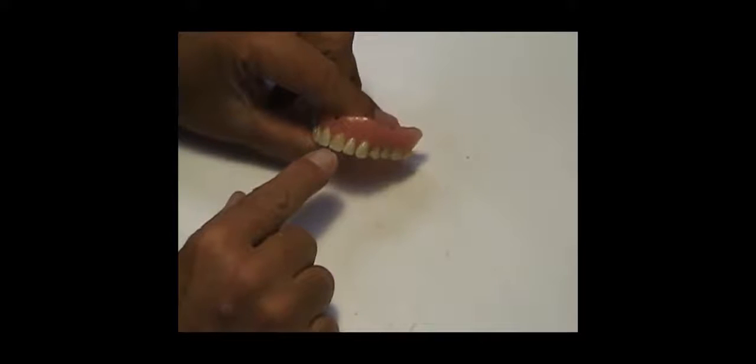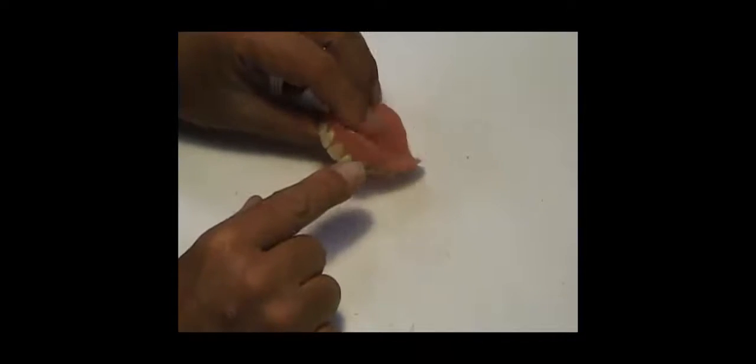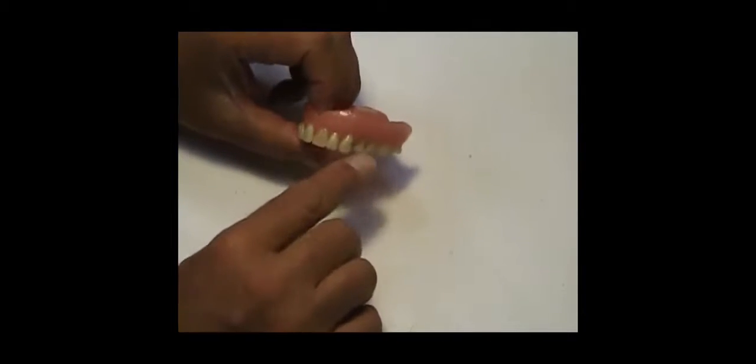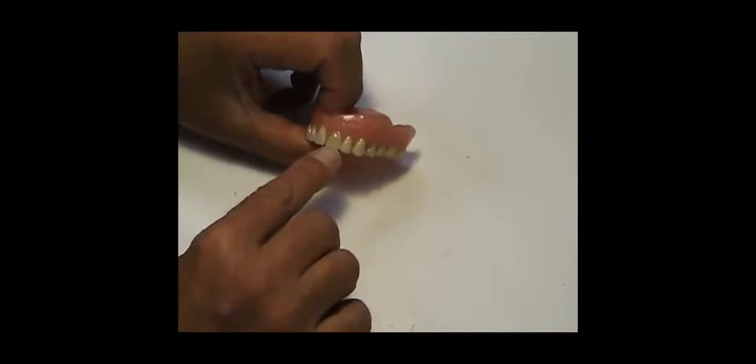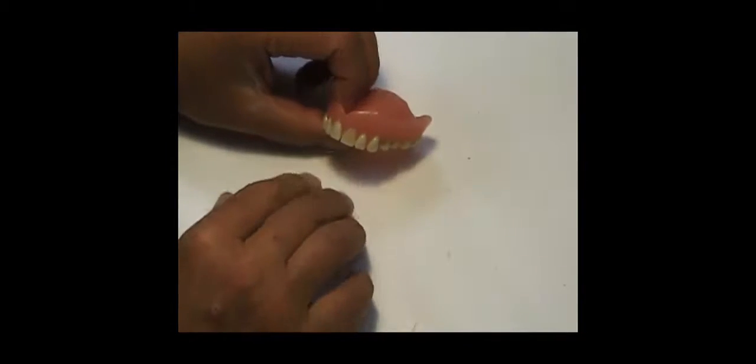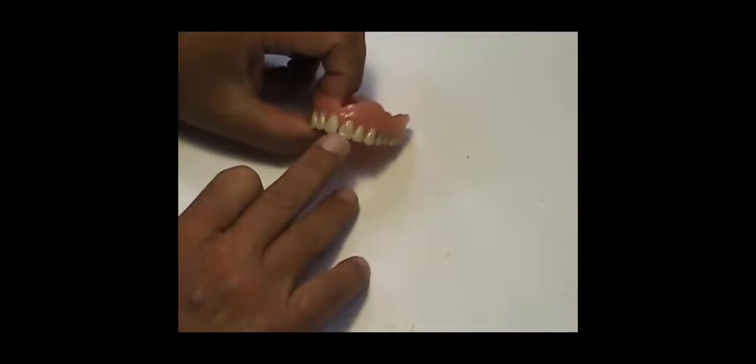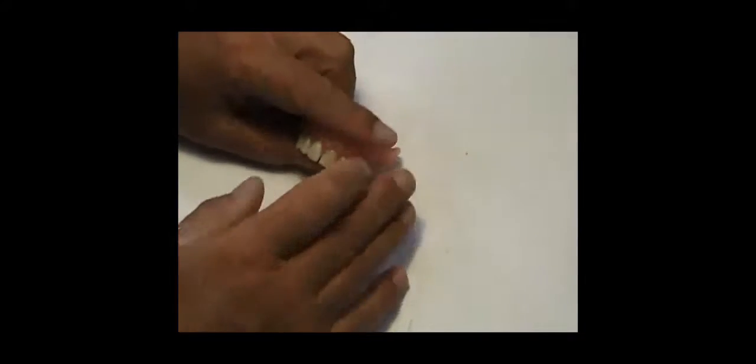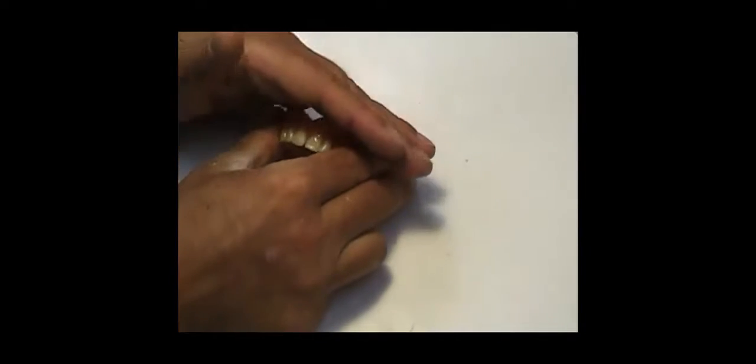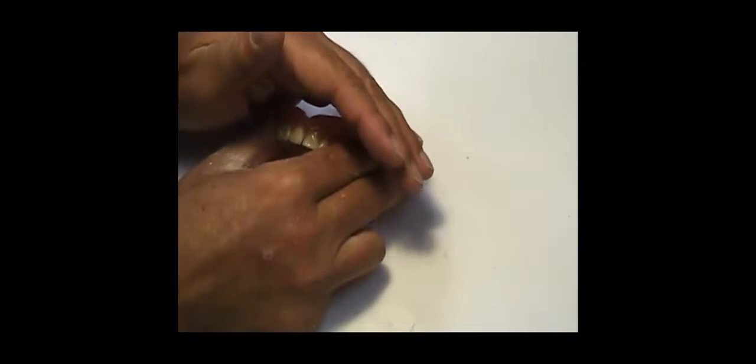This tooth here was another replacement tooth in acrylic. Unfortunately, when you start to polish everything and clean it up, the differences in shade start to show up. It's nothing I did - it was already semi-different, but because all these other teeth were so nasty and dirty it didn't stick out as much. There's a little bit more of a difference now. Nothing I can do there, folks.